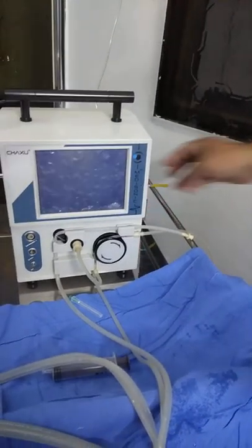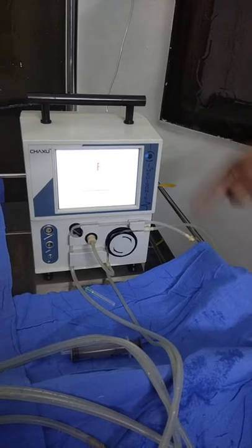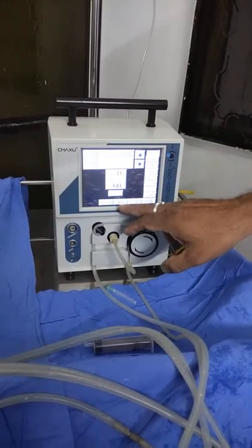This is how you put it on the surface. This is the ideal. It also has irrigation.